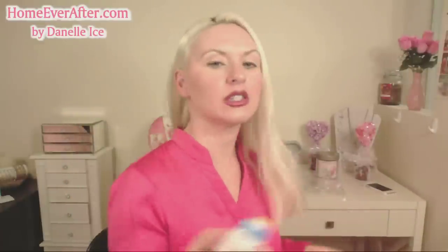Let's check the quick reference guide. Behind ear: press power button, wait for OK, position behind the ear on skin, press button, wait for beep, release. That is what I did. It also says the button must be pushed all the way. Even in the guide, it's not telling me anything I need to do to make it show the color. Maybe I did it wrong — let's try it again, pushing the button in all the way.